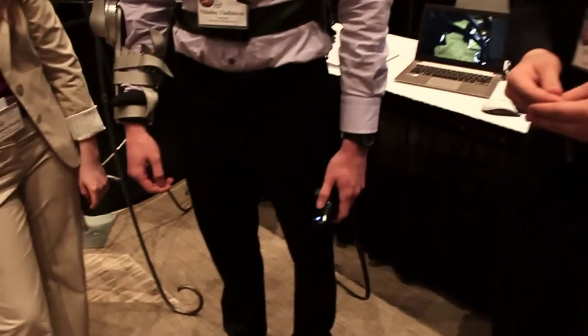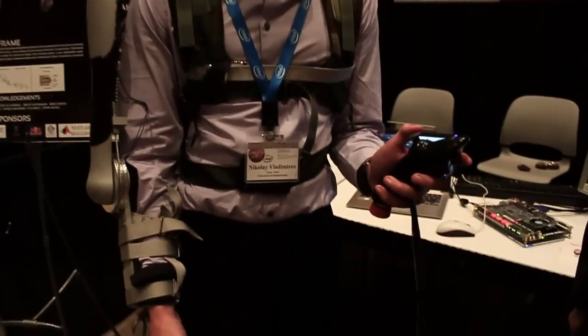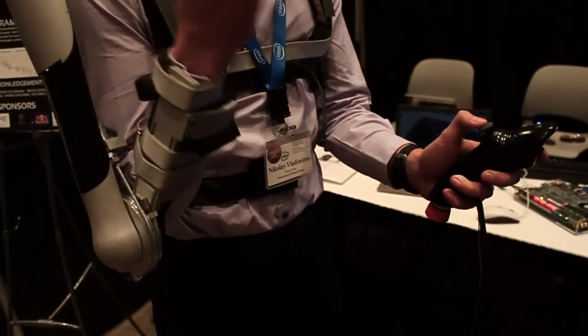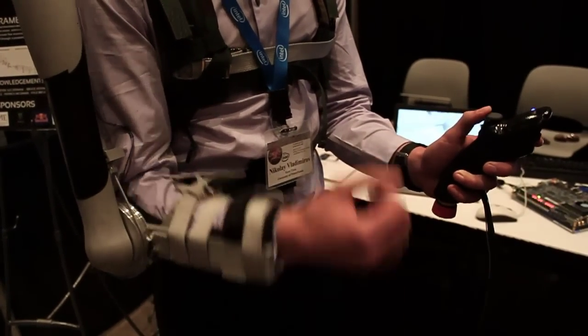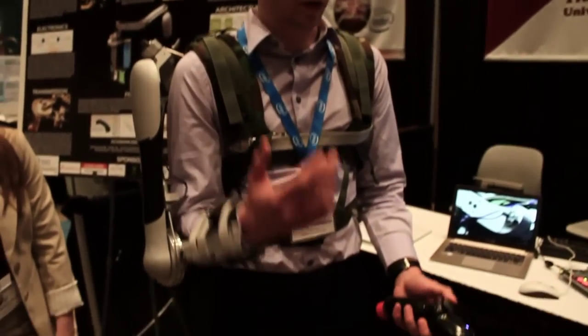You've got a joystick down there — what does that do for the whole system? This joystick drives the control of the actuated elbow joint and gives us the bicep curl and also the tricep extension motion. We chose a joystick partly because a competing system, the Ekso Bionics lower-body exoskeleton, also uses a joystick controller. For future implementation, we'd want to look into EMG — electromyography sensors — that can track muscle activity and automatically pick up on your motion and follow you.